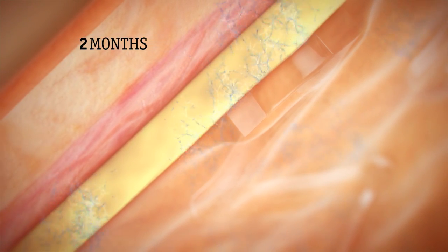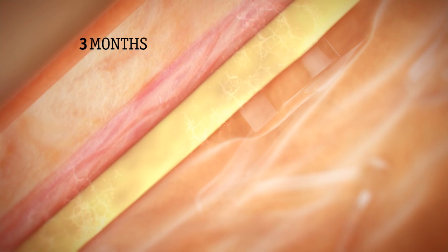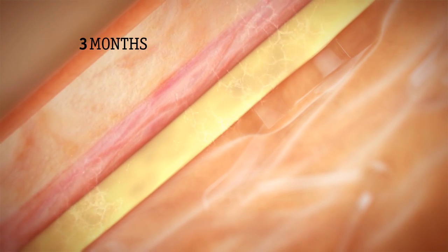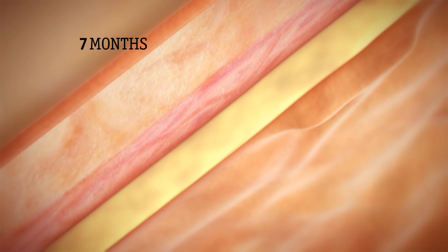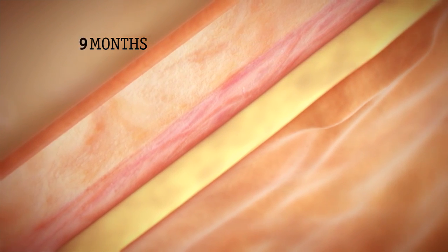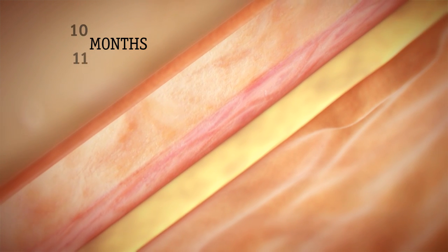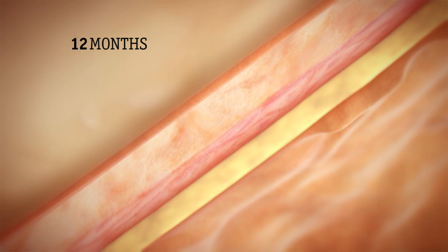Shortly after the drug is released, at 3 months, the polymer is fully absorbed, simply leaving a bare platinum chromium stent and providing patients with the freedom from long-term polymer exposure, potentially reducing the risk of very late stent thrombosis and need for prolonged dual antiplatelet therapy.